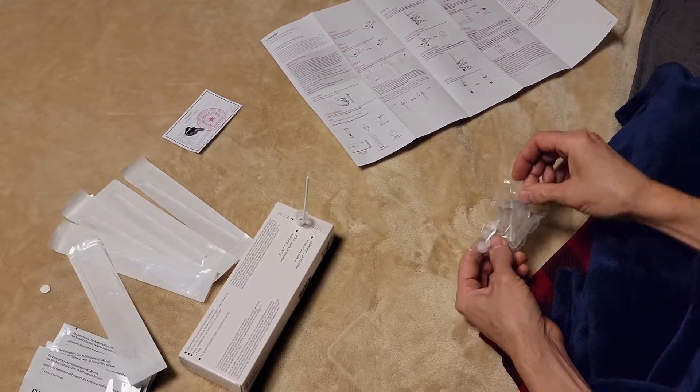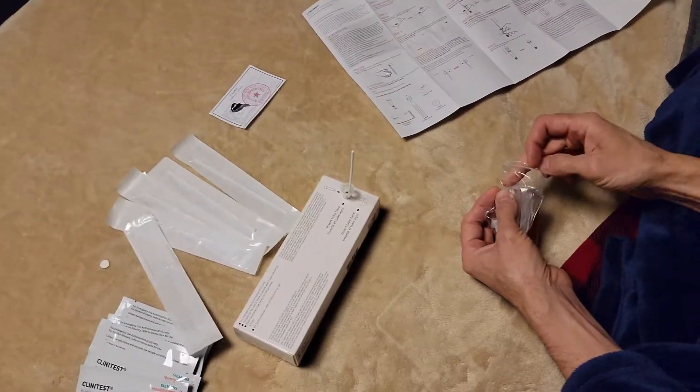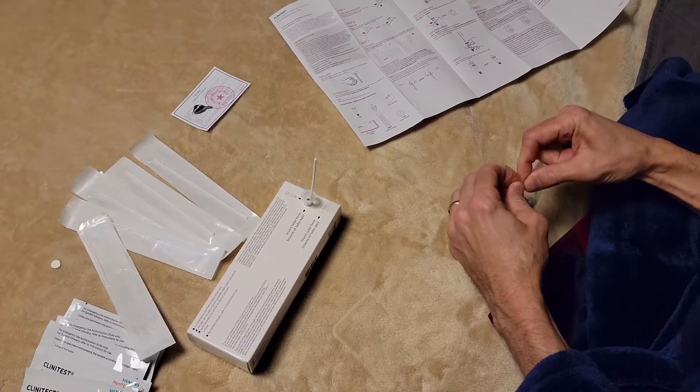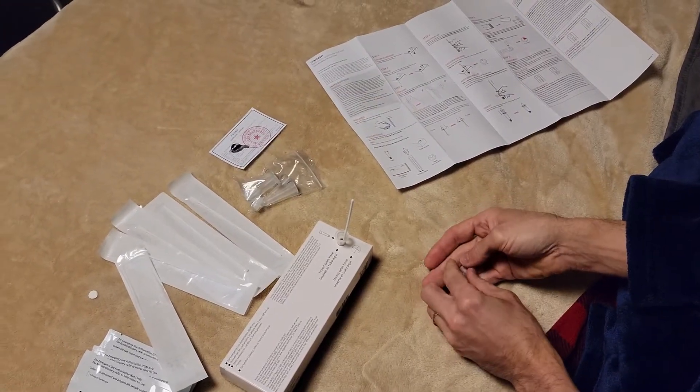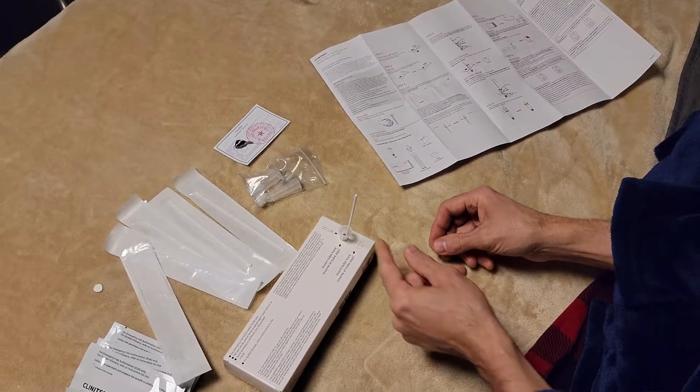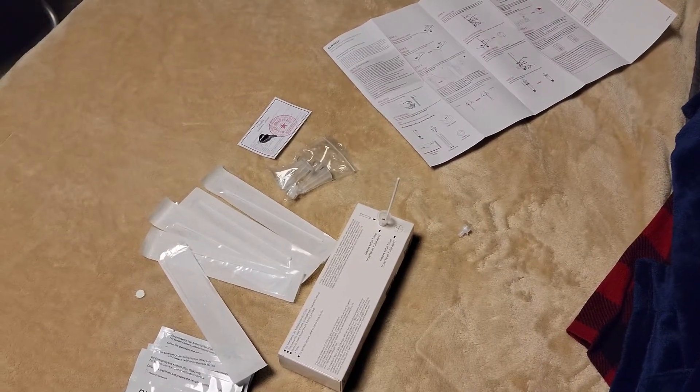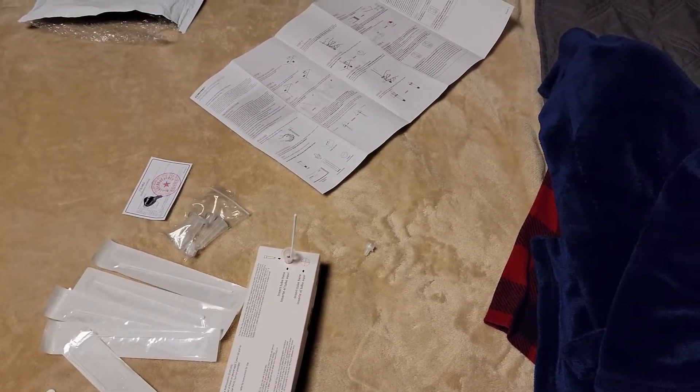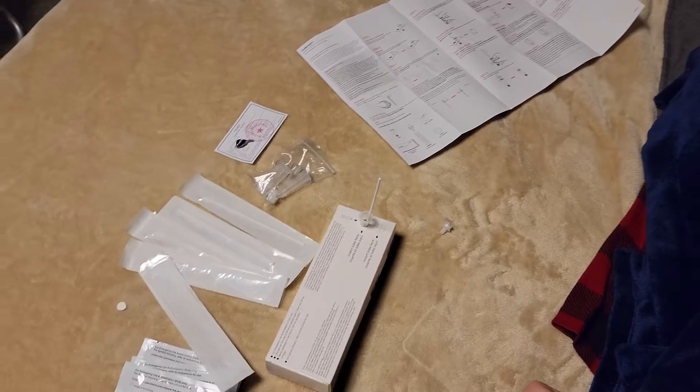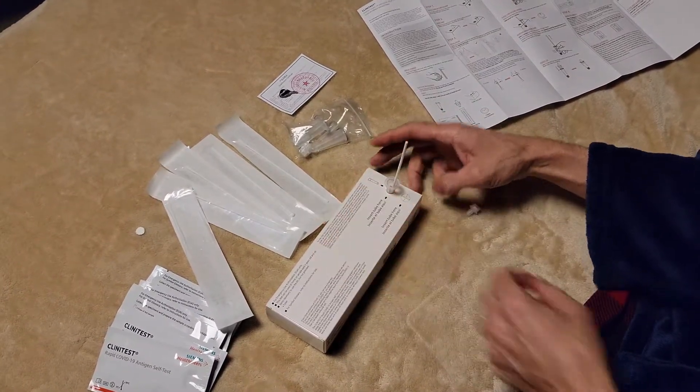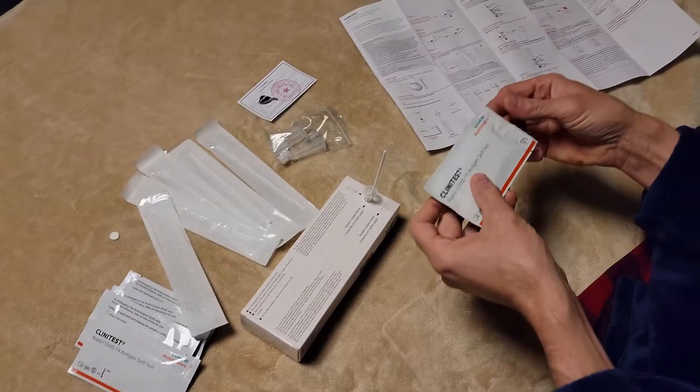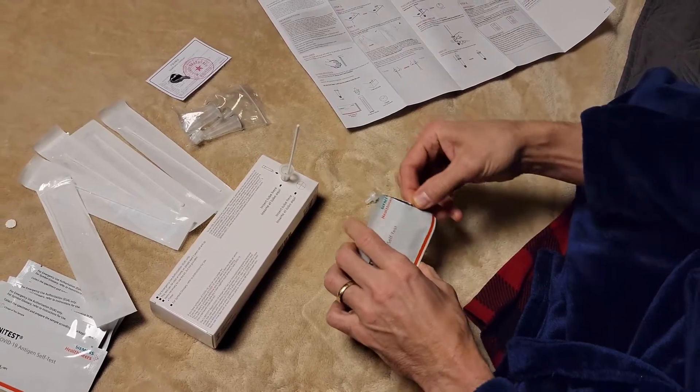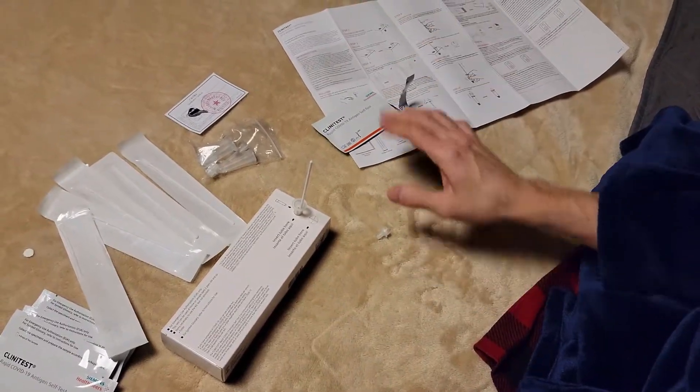I'm going to wait for one minute. While we're doing that, we can get a little cap out here. So it's been about 10 seconds. After one minute, take the tube out of the tube holder and we're going to squeeze the stuff out of there. So that second hand is not even working on the clock there. So it's been about 20 seconds. While we're doing that, we can open up one of these I think. Maybe we'll wait just a second, have it open, get it ready.